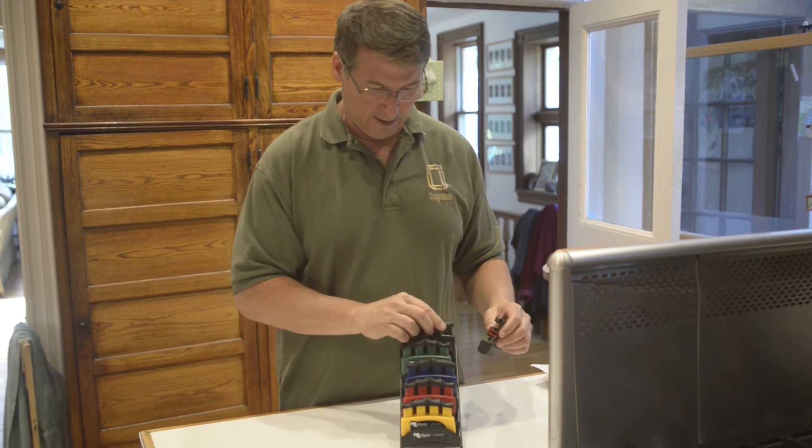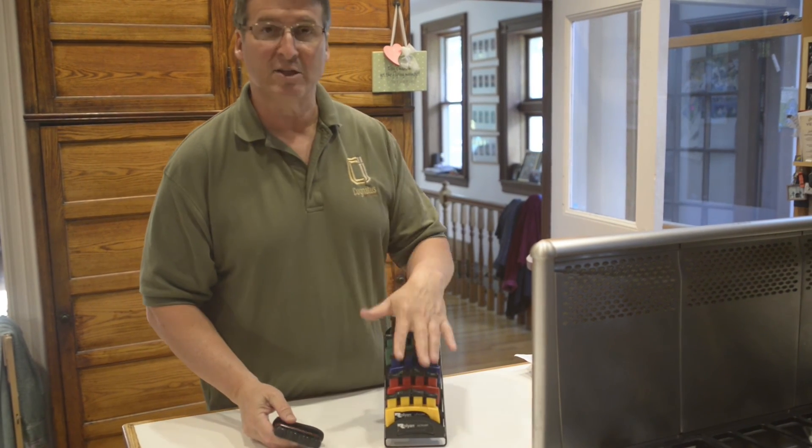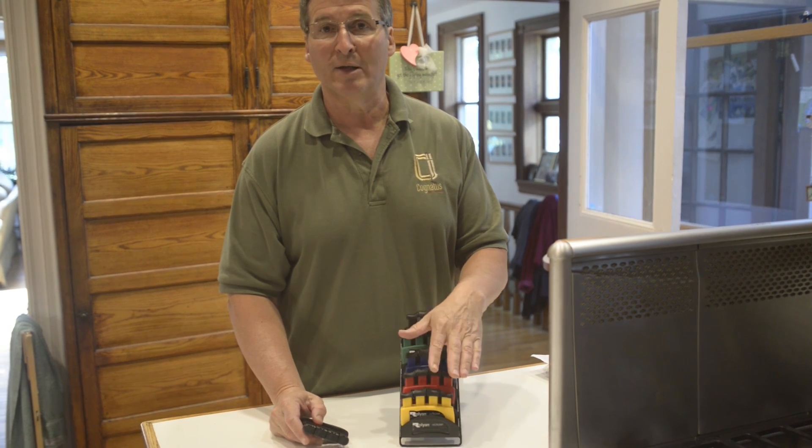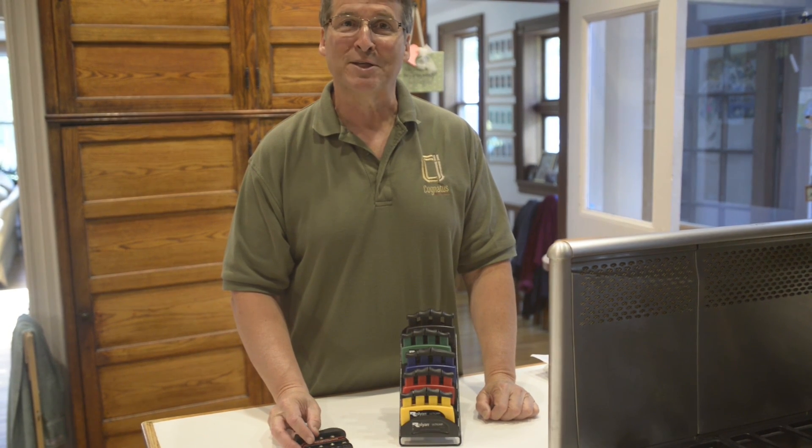It's that dramatic a difference. Five strengths — the exact same strengths as the current DigiFlex — and it's a little bit cheaper in the catalog. Happy selling.